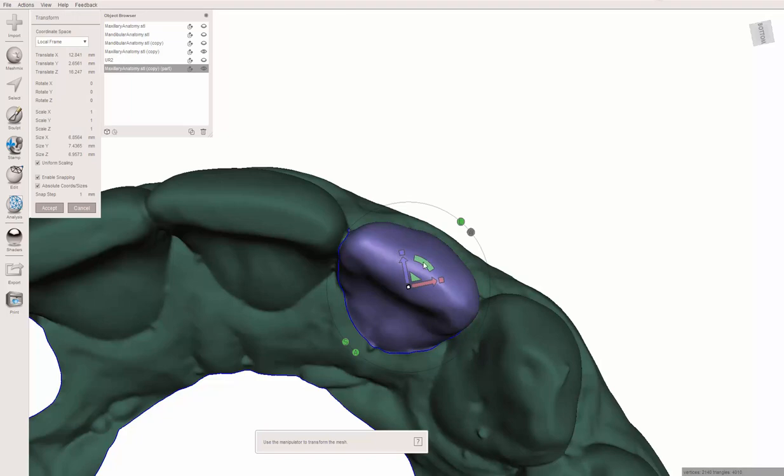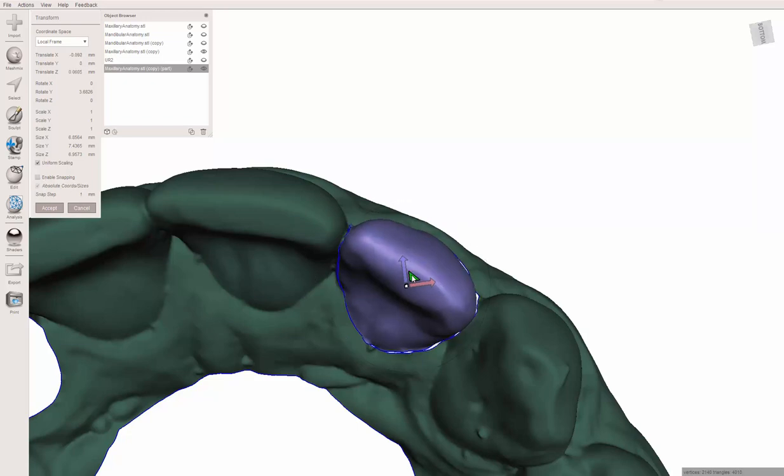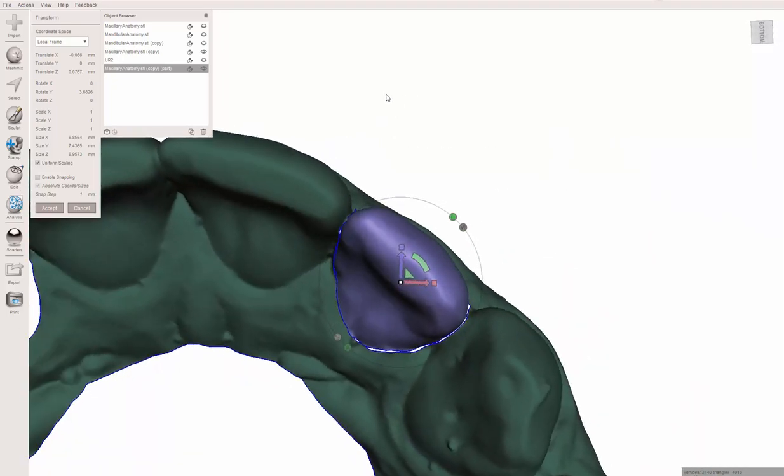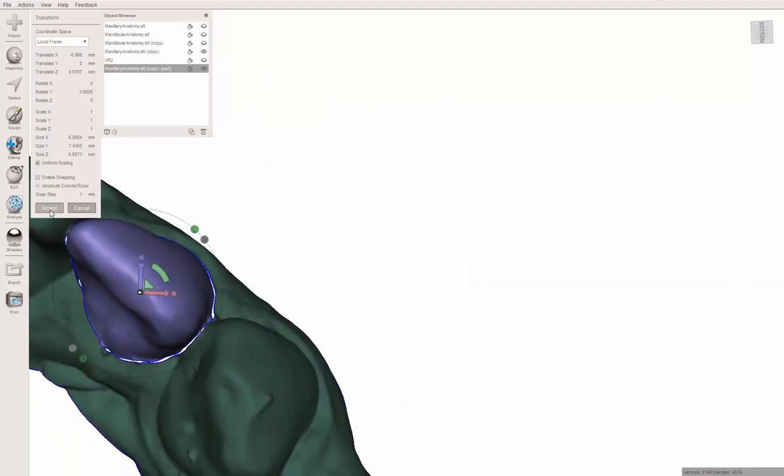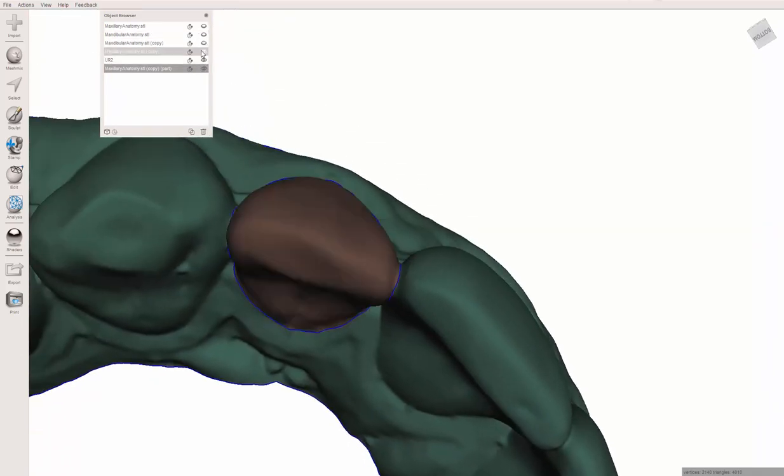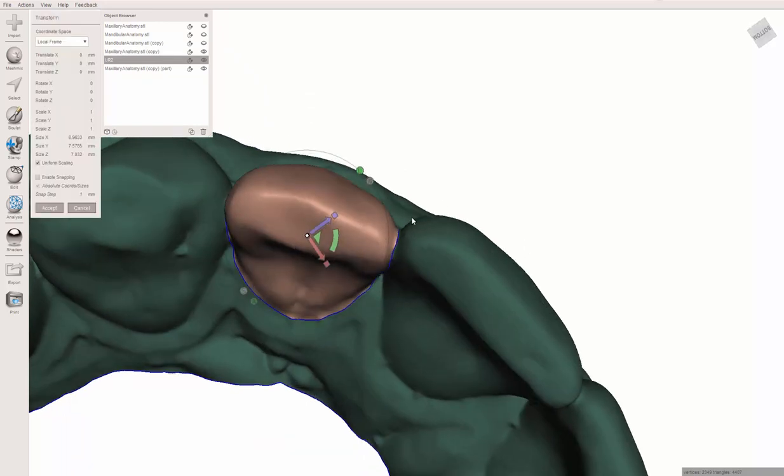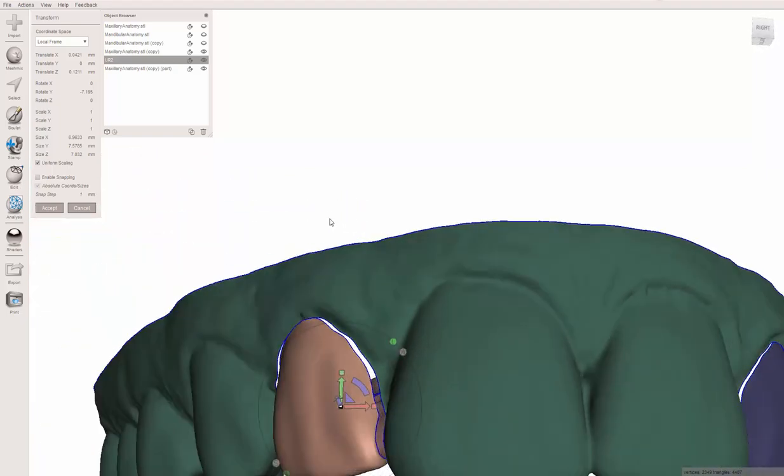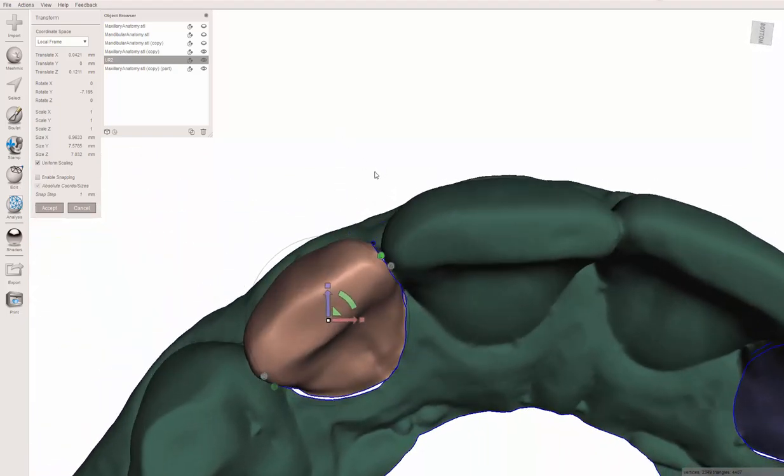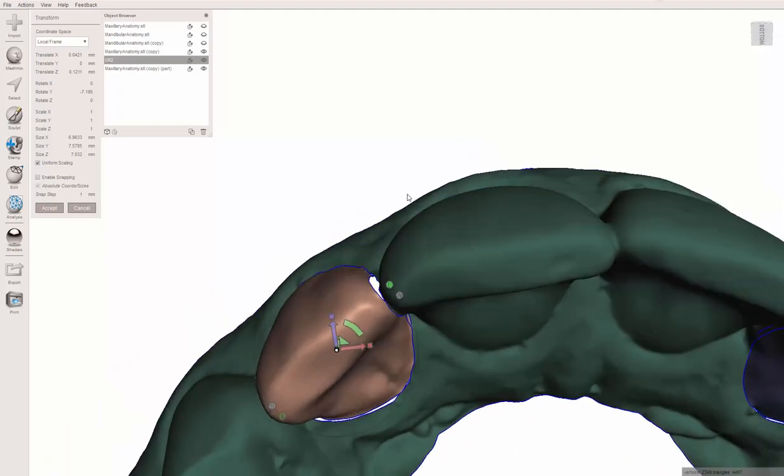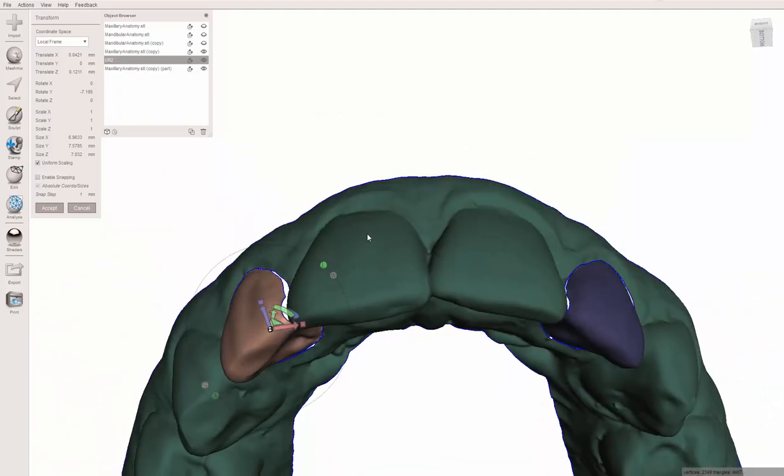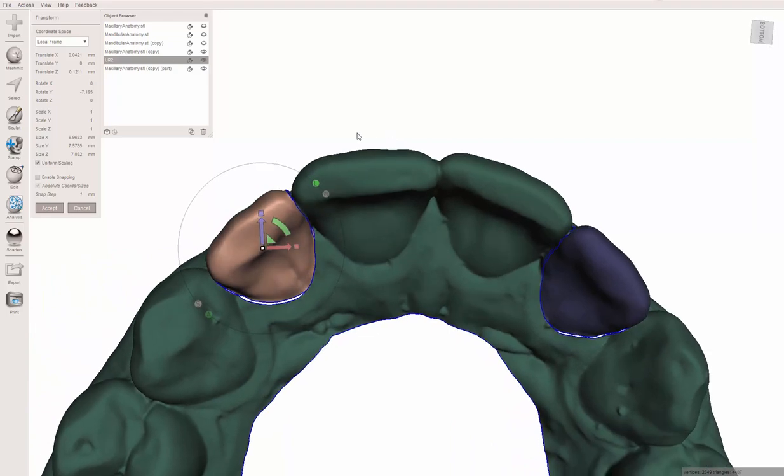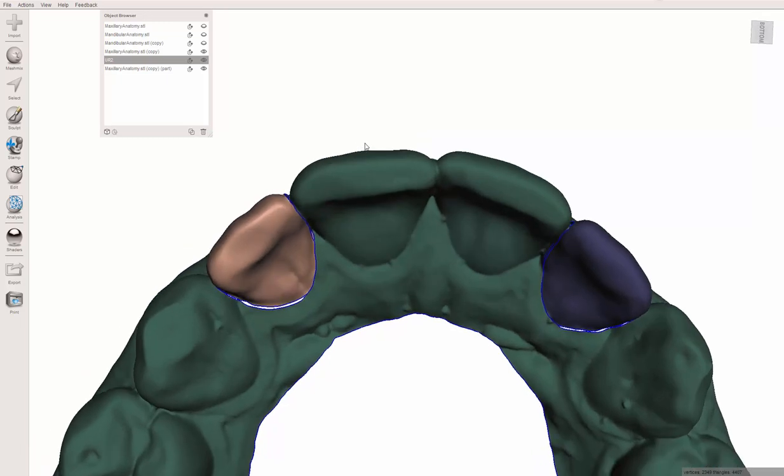Let's make this menu a little bigger, easier to read. Turn back on the maxilla. I went ahead and cleaned these models up already and duplicated them. I'm going to turn the maxilla back on here, so I've got this tooth. I've never taken the time to figure out how to change the colors of surfaces. This dark model is going to drive me a little bonkers, but let's go ahead and turn this tooth. I'm going to hit the T button for transform and move it to where we want it. I'm going to uncheck enable snapping. I'm not trying to move it sideways, just turn it a little bit.